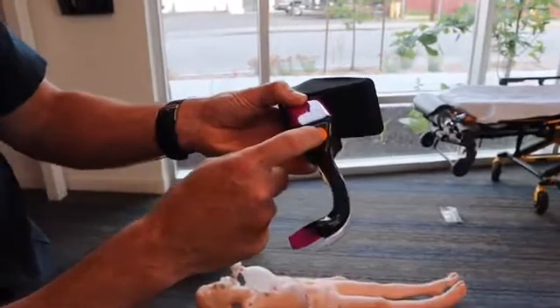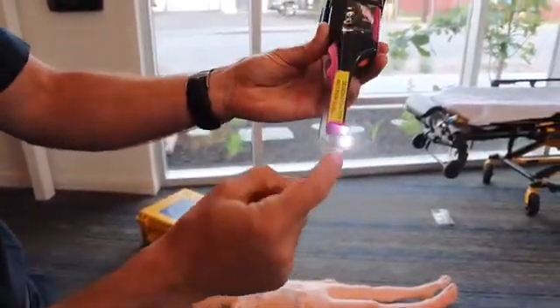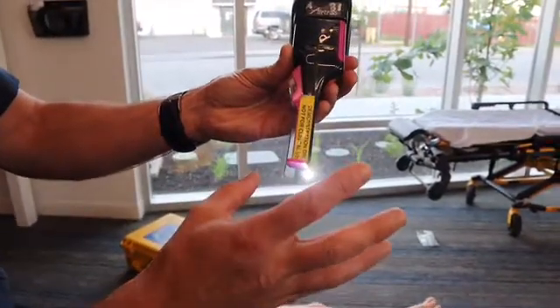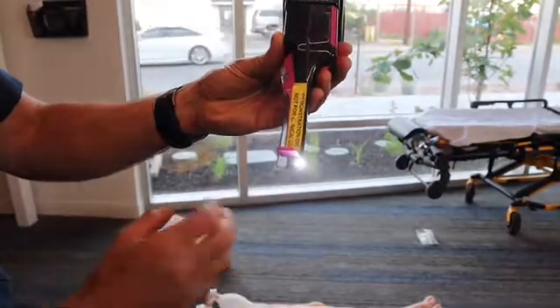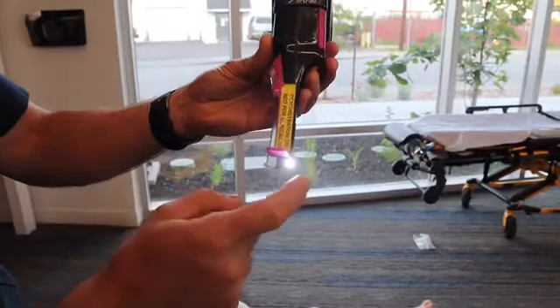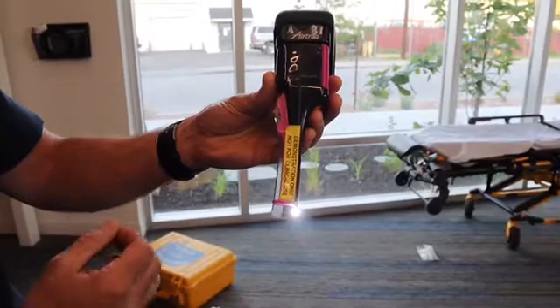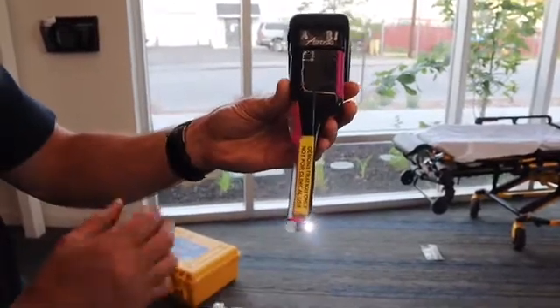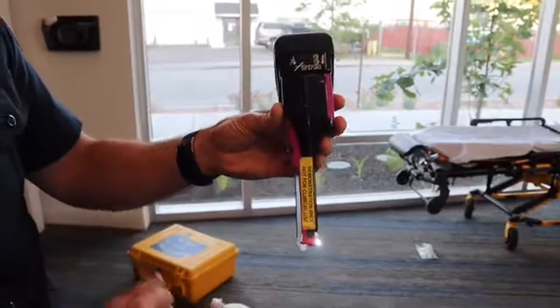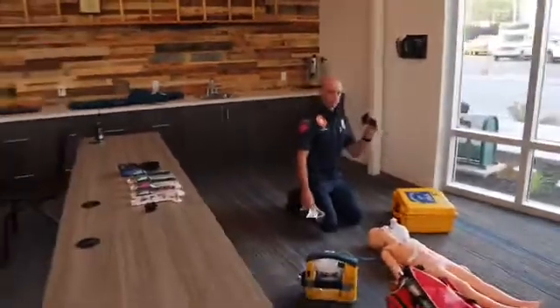To begin, once you pull this out of the packaging you have to turn the light on by pushing this orange button. That turns the heated element on, which prevents fogging of the camera once it's inserted into the patient's airway. That takes about 30 seconds to fully warm up and prepare for intubation. During that 30 seconds you can set the rest of your intubation supplies up.